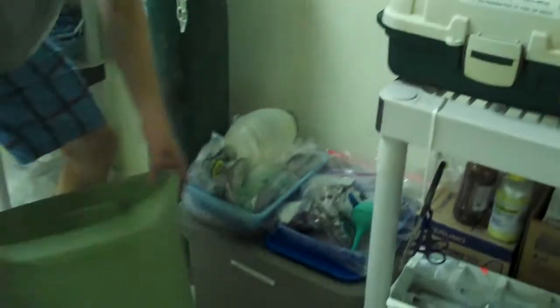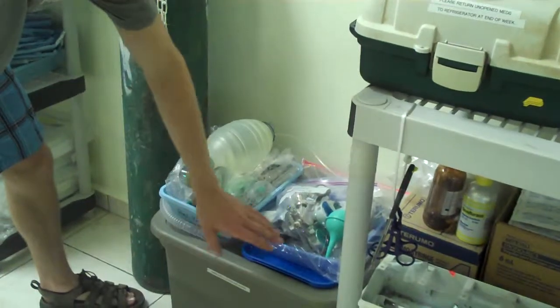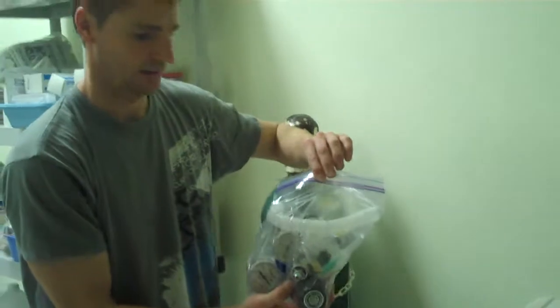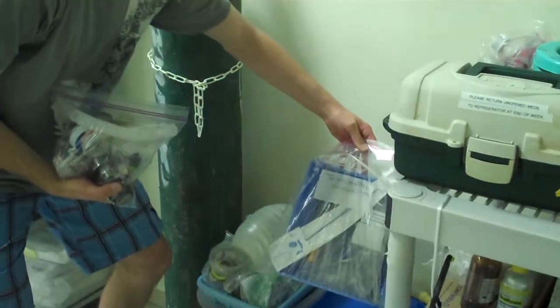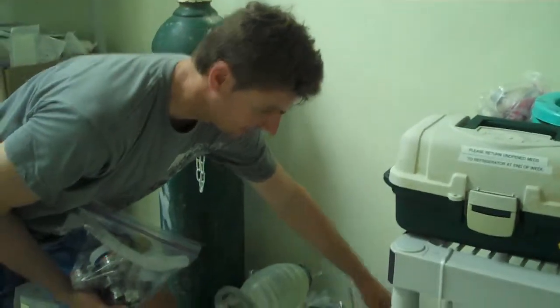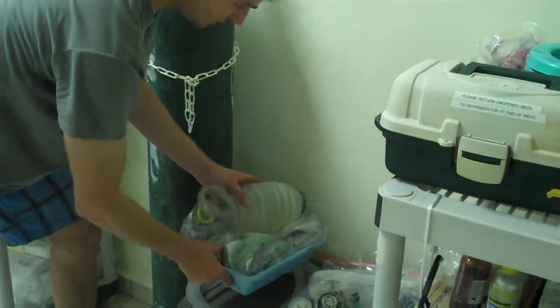When you arrive, you'll find a box of circuits and anesthesia masks next to your tank. There's a package that has the necessary regulator as well as the contents of what you would normally place in your anesthesia machine, including suction catheters, stylets, etc. You may also want to place these masks on the anesthesia machine.